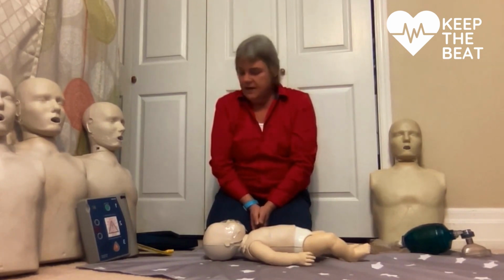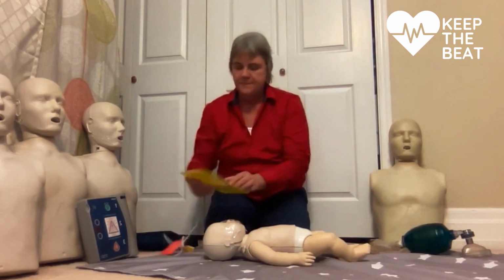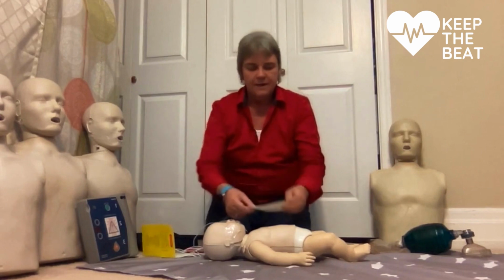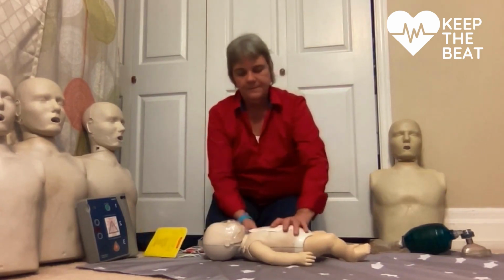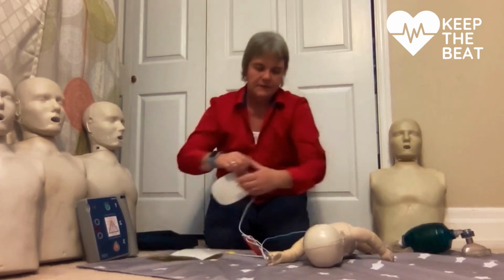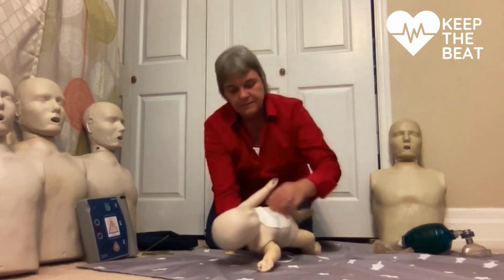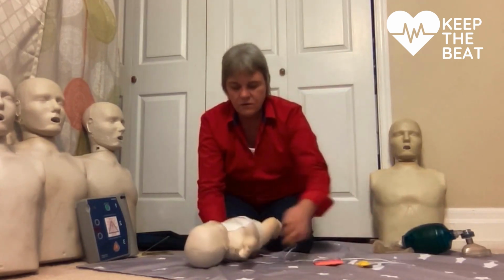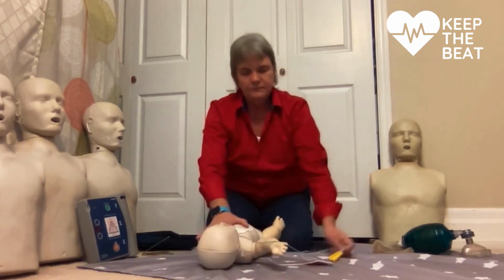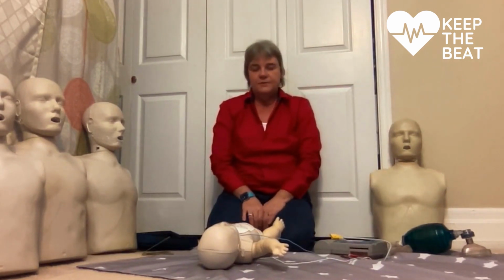If somebody brings the AED, I can put the AED on my infant, and I'll do that by putting a pad in front and a pad on back. I'll flip him over, lay him down, plug in the AED, and I'll follow the prompts.